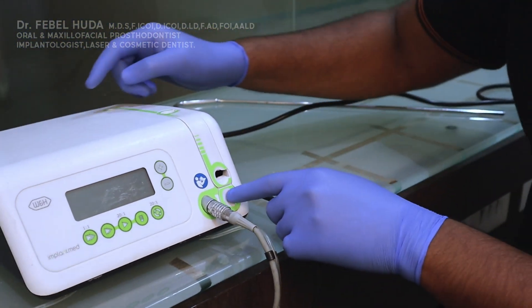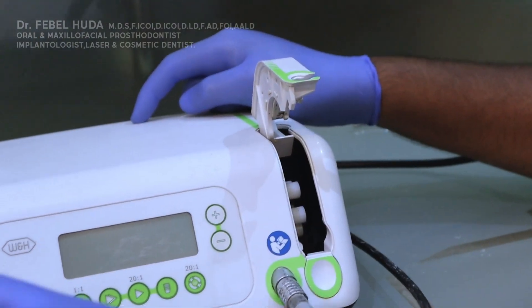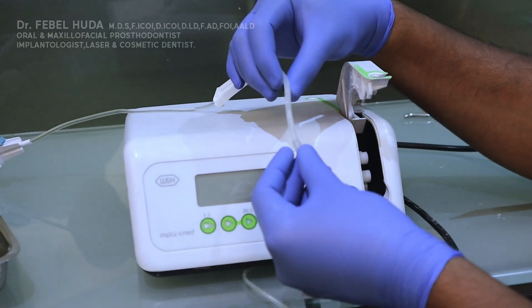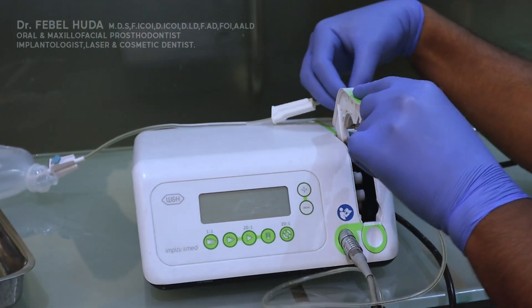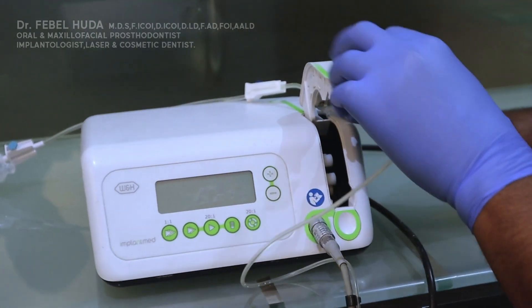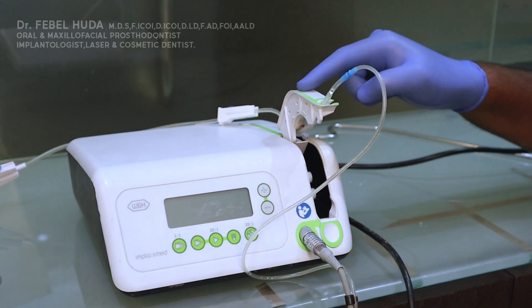Then you press this button and the chamber opens up — this is where your saline tube attaches. The saline tube has a flexible end with a knob at the top and bottom. The top knob goes into the top notch, then you pull and engage the bottom part.